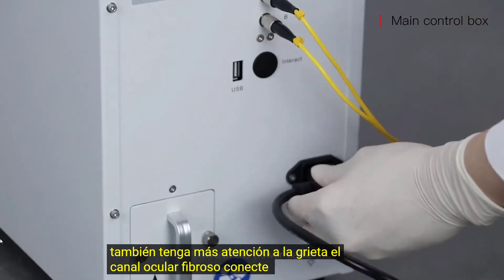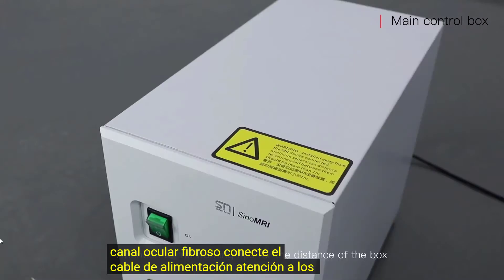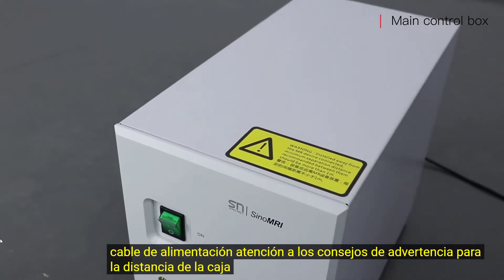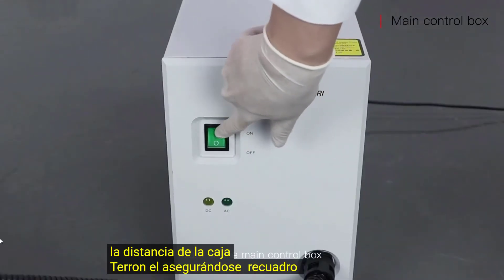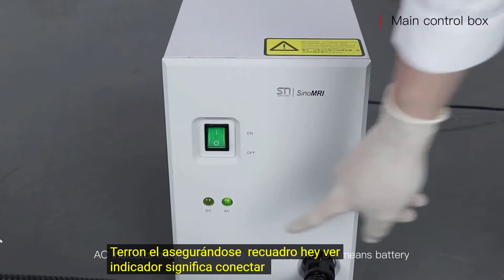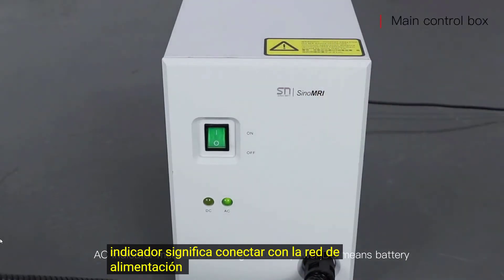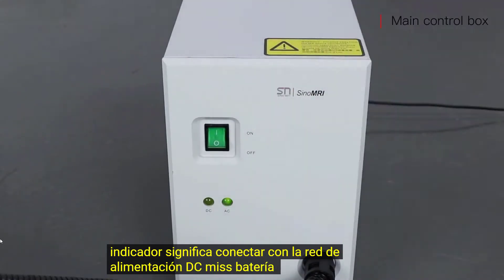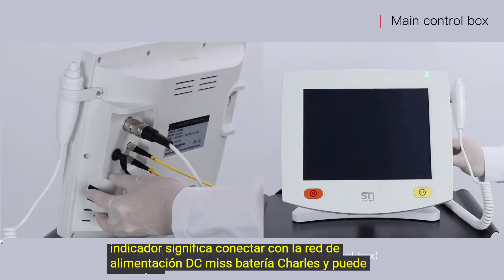Connect the power cable. Pay attention to the warning tips regarding the distance of the box. Turn on the main control box. The AC indicator means connecting with mains power; DC means battery. Turn on the main console.